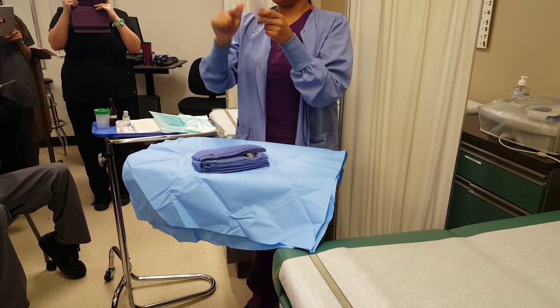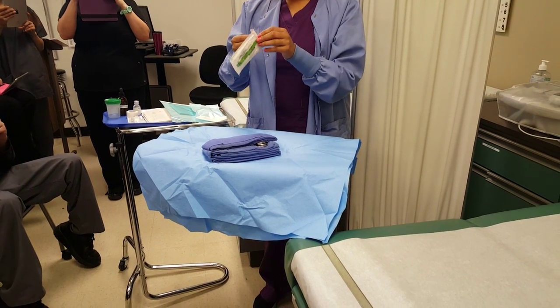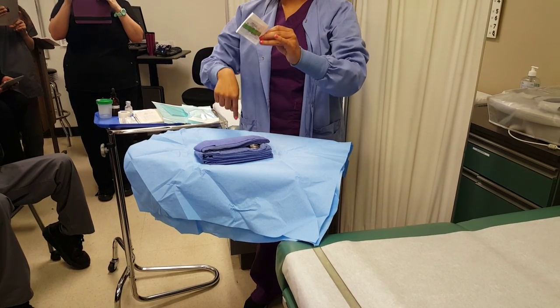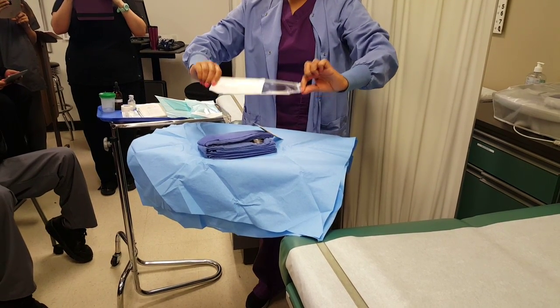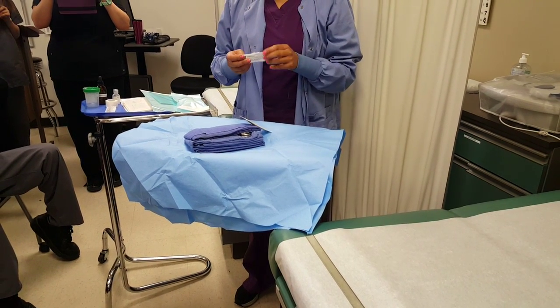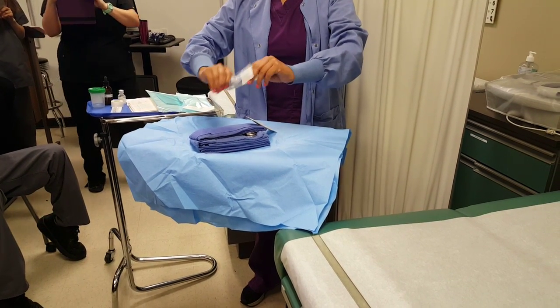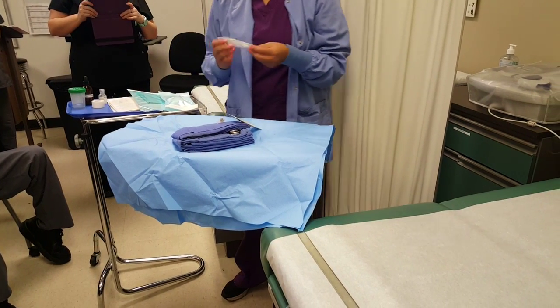This outside package is not sterile, so your hands are fine touching it. You need to hold it up kind of high — not so low that it might fall off the tray, but high enough so the wrapper does not touch your tray. Where it falls, it falls, as long as it doesn't fall outside the sterile area. You have to be close enough but not too close where the wrappers might touch, and sometimes gravity just does its own thing.